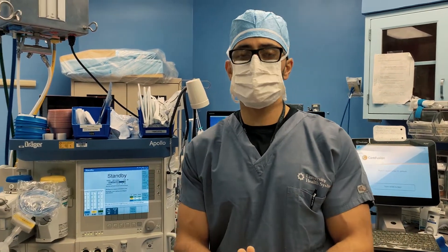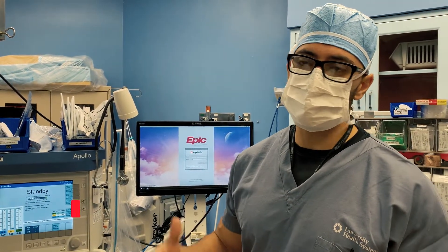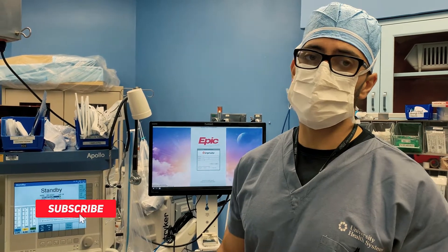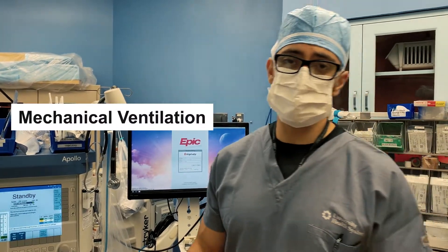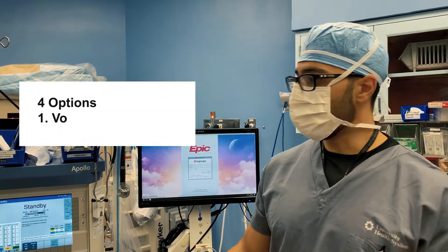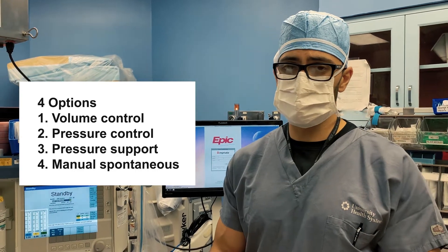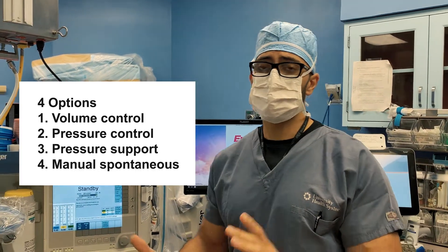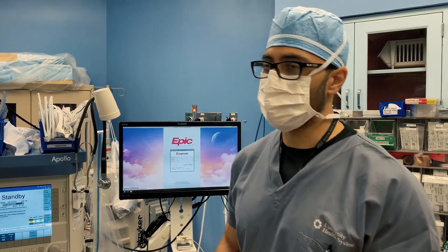Hey guys, Dr. Maida here. I'm a fourth-year anesthesia resident at UT Health San Antonio. I'm going to go over some ventilation settings — quick tips to help you out when you're starting as an intern in the OR. We're going to focus mainly on the settings we use for mechanical ventilation in the operating room. You usually have four different options: volume control, pressure control, pressure support, and manual spontaneous, which means the patient breathes on their own without any assistance.